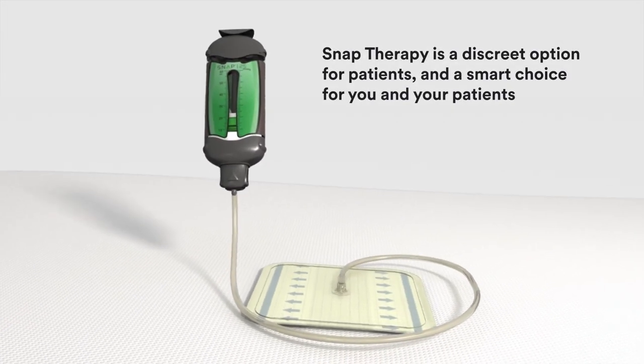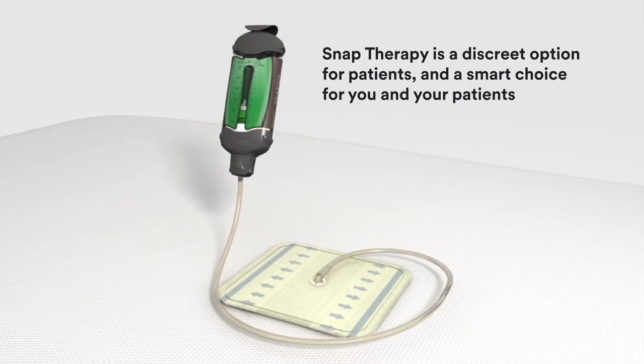SNAP therapy is a discreet option for patients and smart choice for you and your patients.